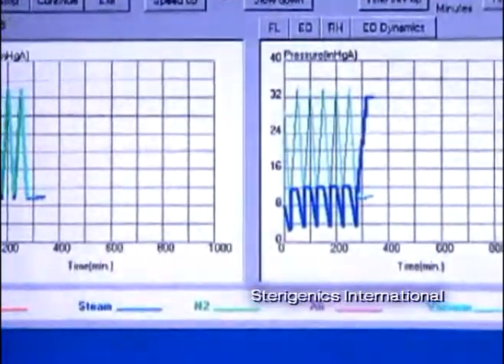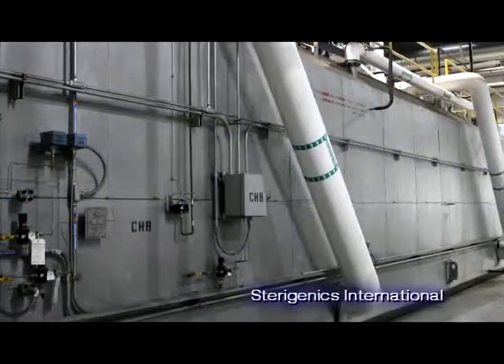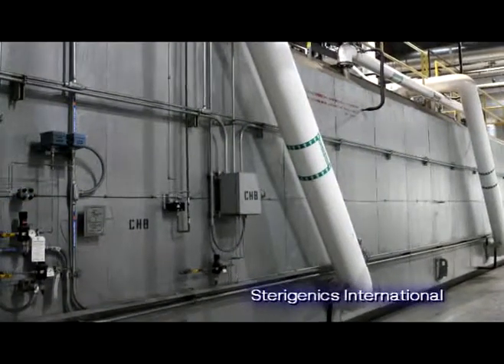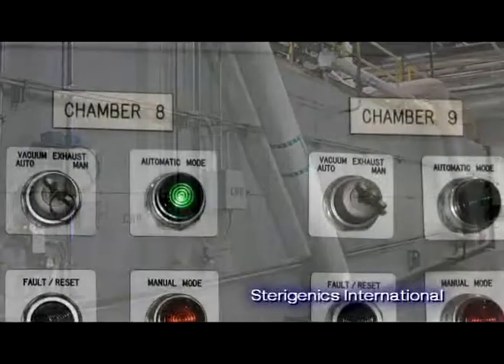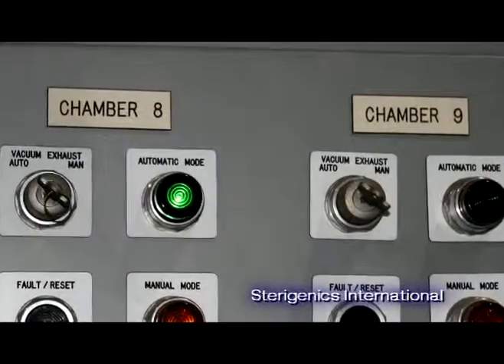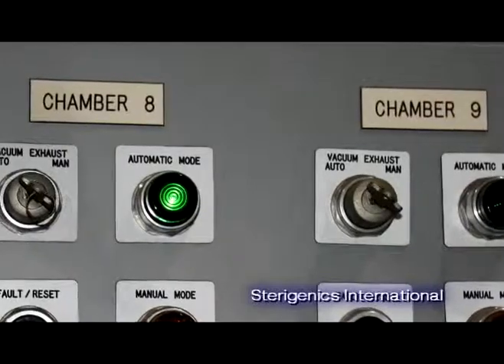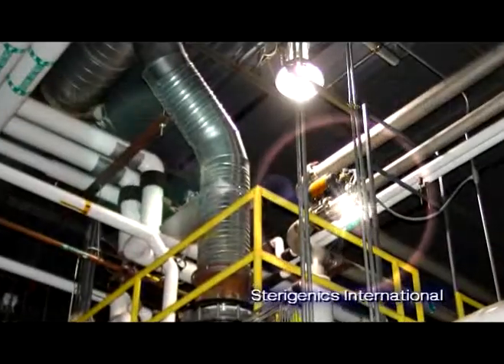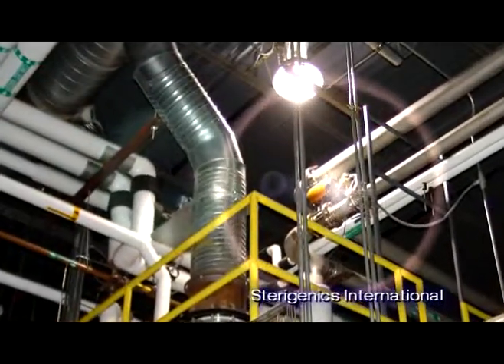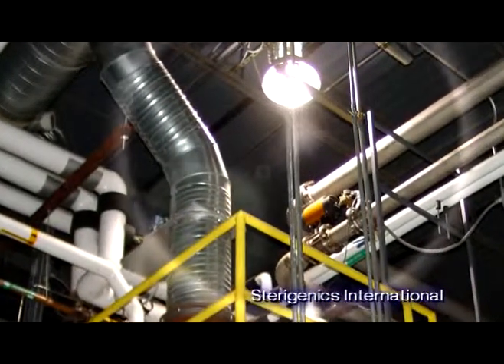The product is bathed in the EO gas and will remain in the chamber for a predetermined dwell period based on the process validation. After the dwell period is complete, the gas will be removed from the chamber and exhausted into a scrubbing system, which converts the excess EO gas into ethylene glycol for recycling.